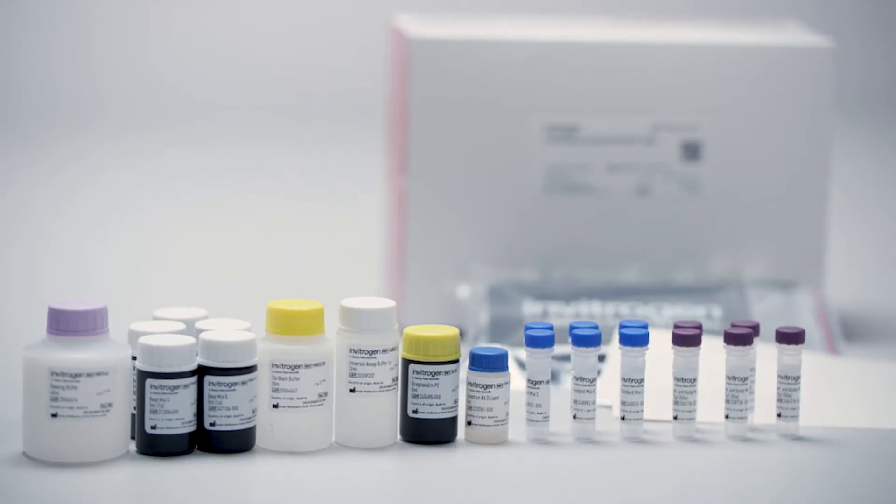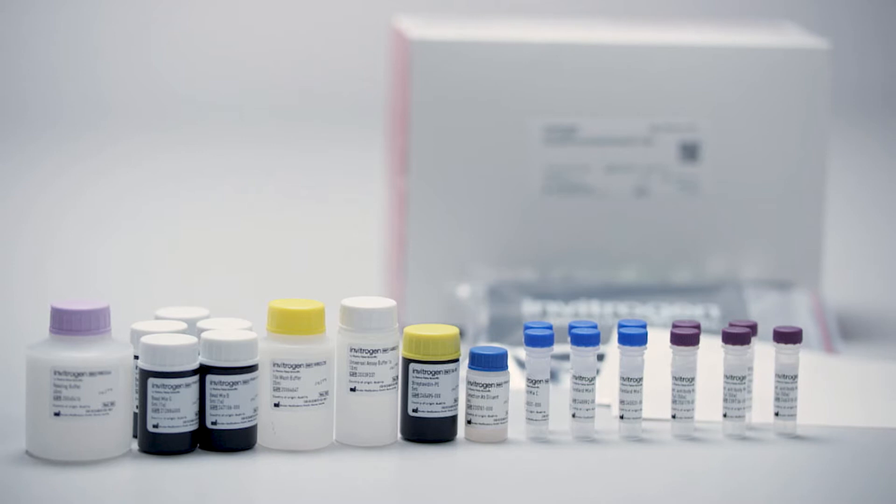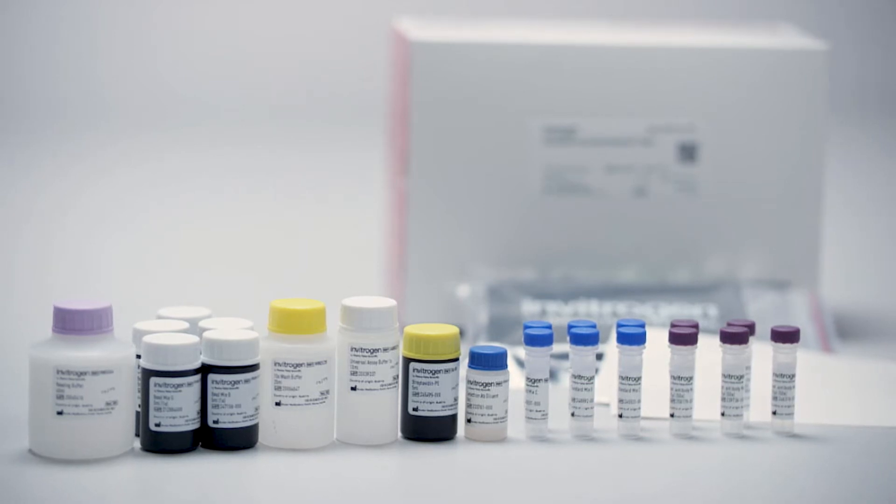Before you begin, bring all assay components to room temperature. Continue by first preparing the wash buffer.